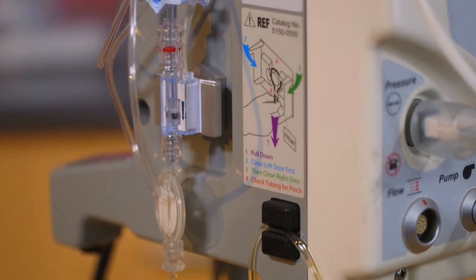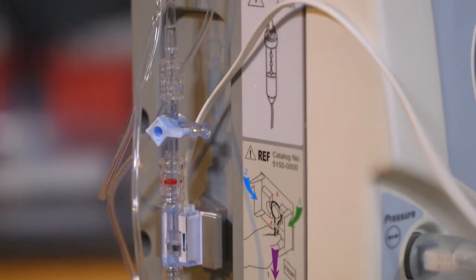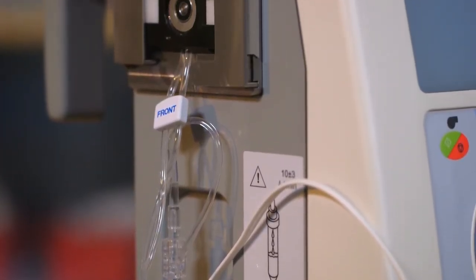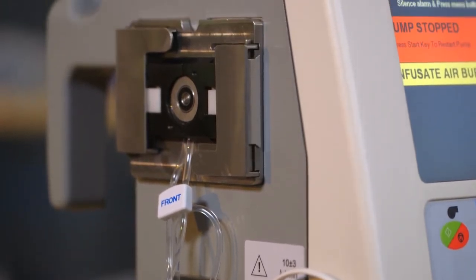Just prior to initiating support, the infusion tubing set must be laced into the infusion pump on the controller infusion panel.